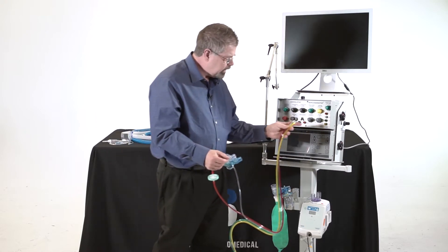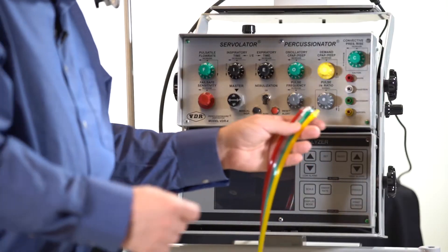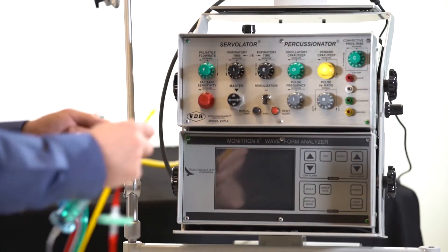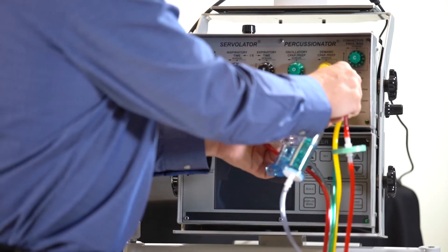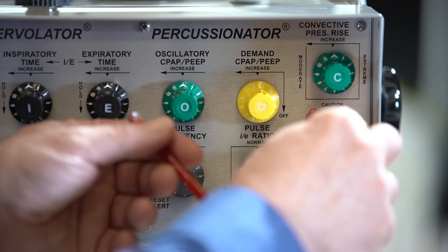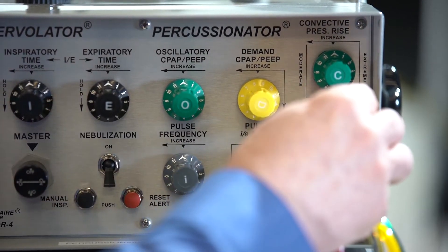Now where I match color to color is right over here on the ventilator. And so I'm simply going to go yellow to yellow, green to green, white to white, and red to red.